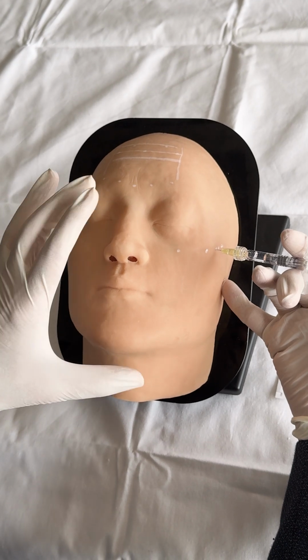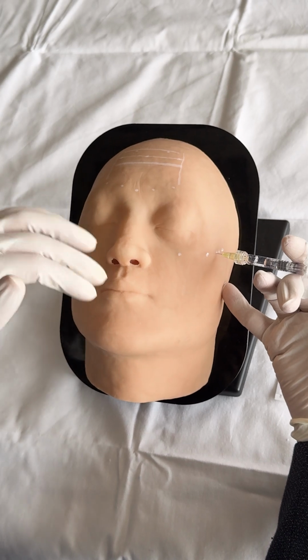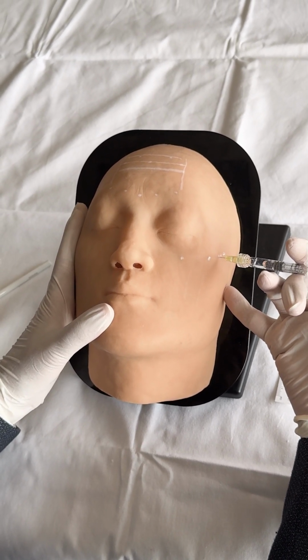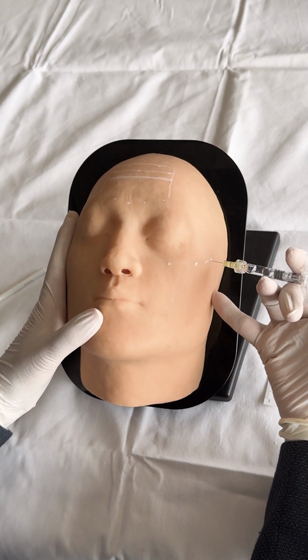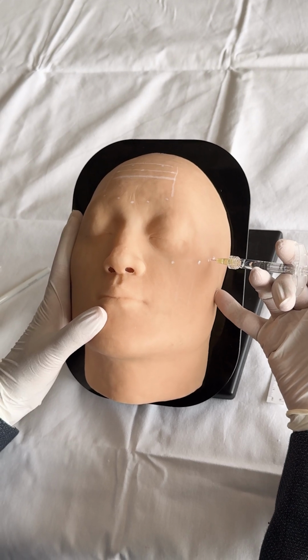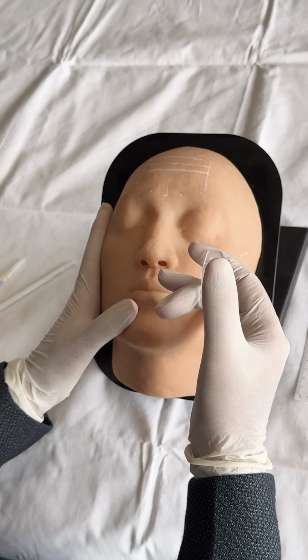Practice the same procedure on all the different points that were marked. A basic knowledge of the depth and the points is all you require while practicing on FaceSim. This is the best simulator to practice after your theory portion is over. Leave your book aside and practice as much as you want to achieve perfection.